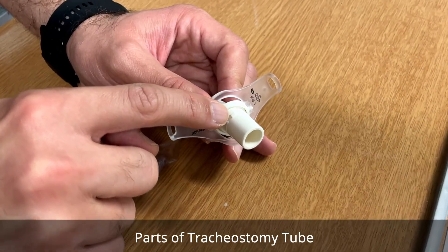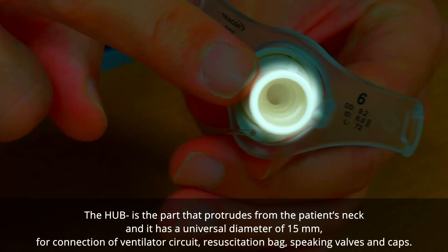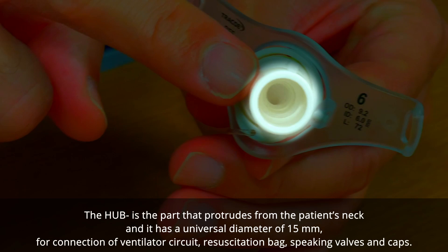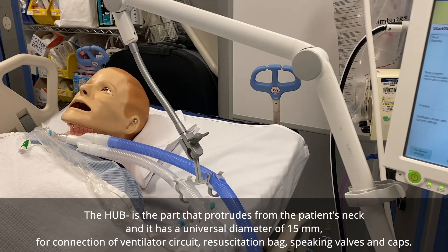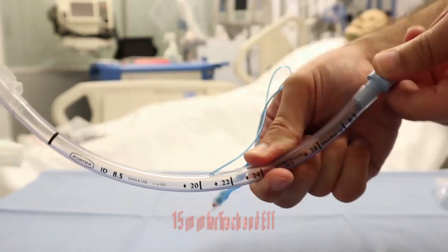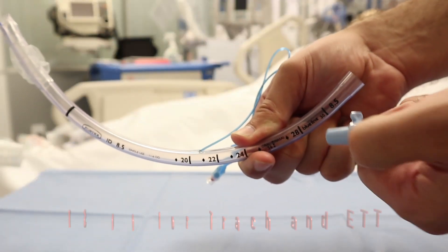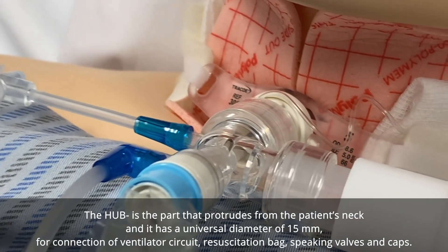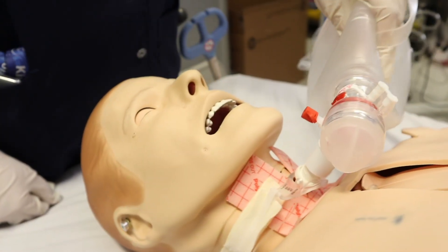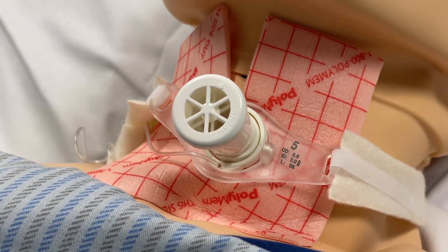Tracheostomy also decreases the possibility of self-extubation or accidental extubation. Now let's speak about the parts of the tracheostomy. We start with the hub — the protruding part visible outside the tracheostomy with a standard diameter of 15 millimeters, which is universal. You can connect it to the mechanical ventilator, ambu bag, speaking valve, or caps.